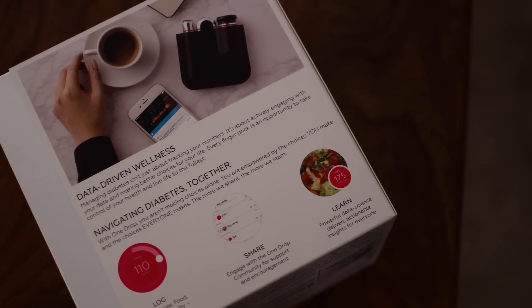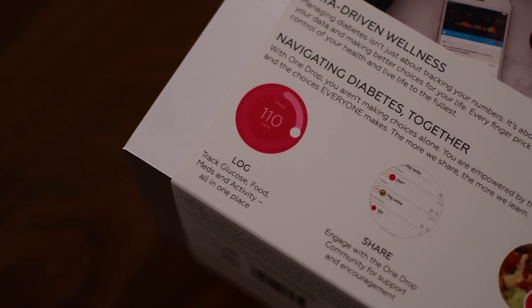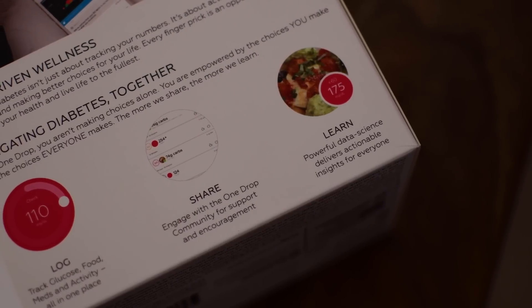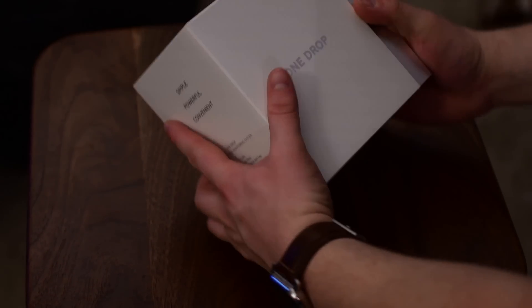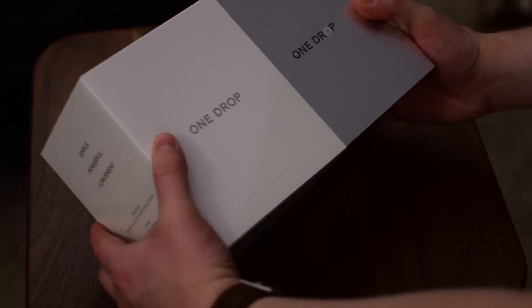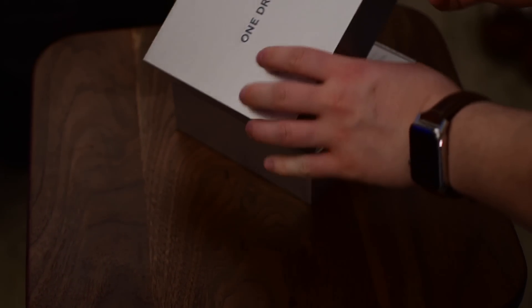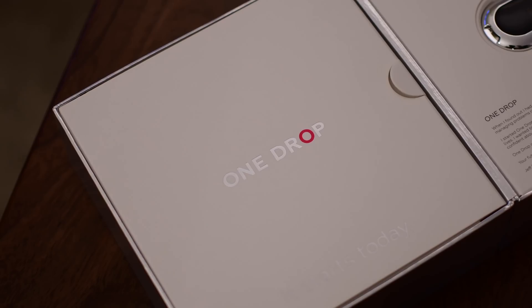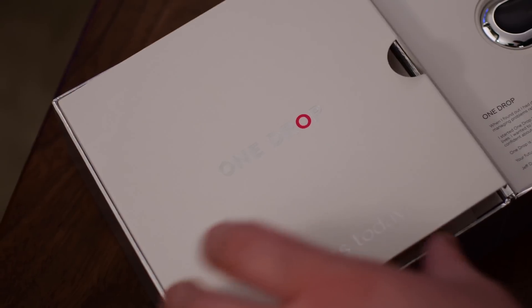It is a Bluetooth-connected glucometer that actually syncs up to the One Drop app — a fantastic app that allows you to track things like your activity, your food, your insulin. Even if you're on a pump, it has a way to program that in and really track everything in one spot. It's also unique in that it is completely a subscription service, so for less than $40 a month, you get unlimited glucose strips, as well as some other perks that we'll touch on in a little bit.